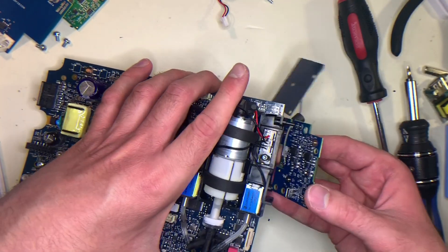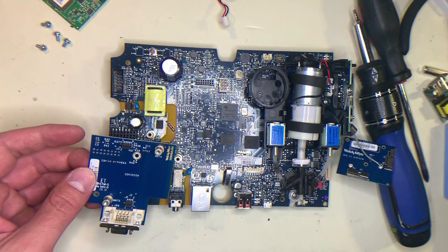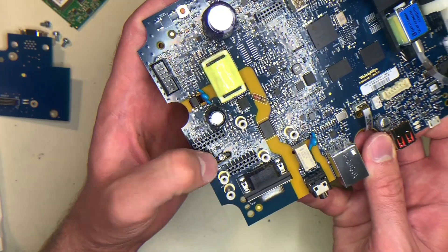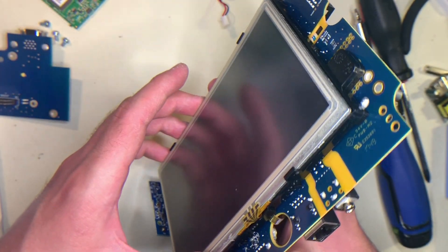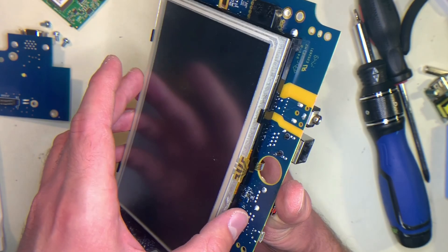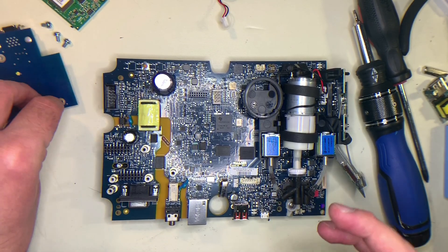I'm going to reattach the wireless board to the side here. Now that the pump and wireless card are reattached, I'm going to put the two SpO2 boards back on. One thing I didn't show was how to take the screen off itself. There's a four-pin flat flex connector being held in physically with two Torx screws. The reason I'm not showing it is because taking this particular screen off is quite difficult — there's another flat flex connector underneath the screen that's very fragile and it's actually taped to the main board at the bottom. Very difficult to put back in, so I would suggest not doing that step unless you have to. I'm not going to do it here because I don't want to risk damaging it or making it unusable.